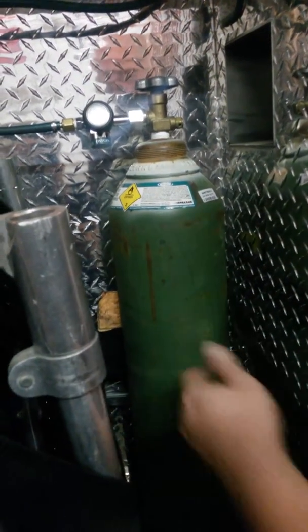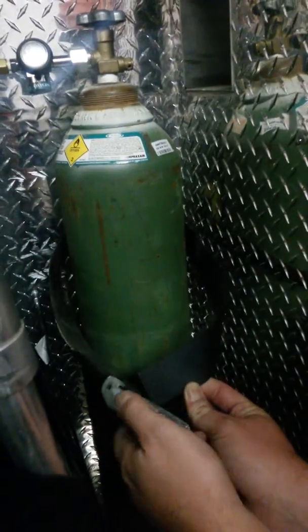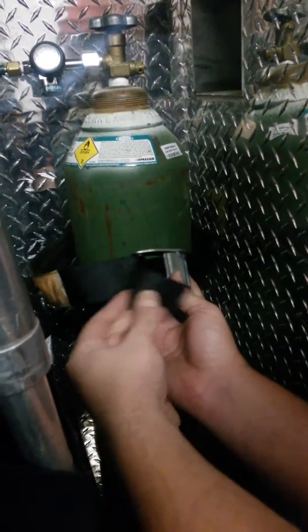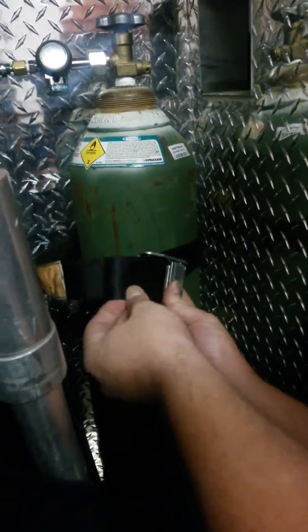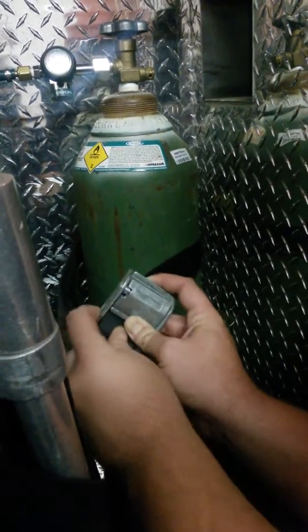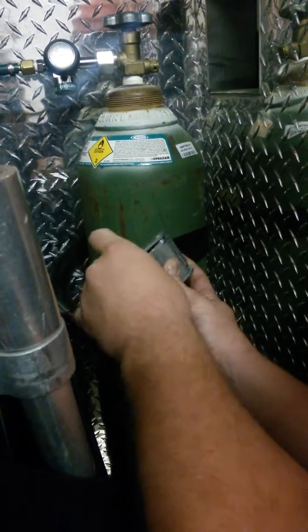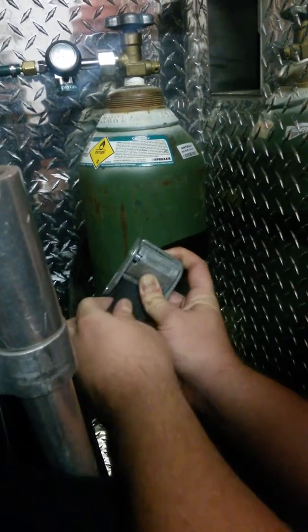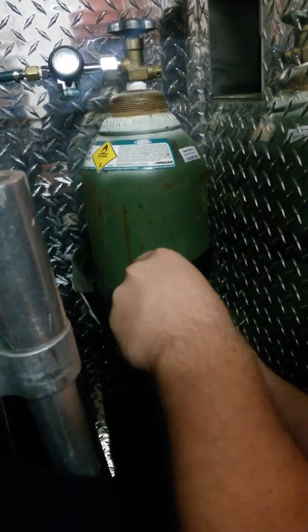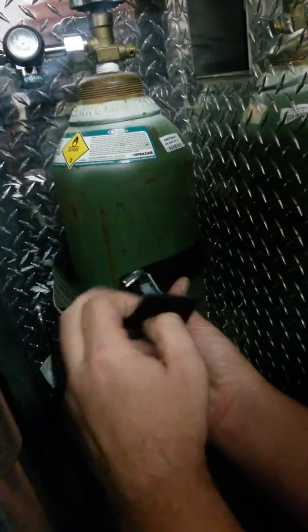This is a turnbuckle strap. The strap goes through the back, push the lever, and feed it back through the front. It's not the easiest thing in the world to get it to feed through. See that? That's where you're feeding it through — those teeth right there.